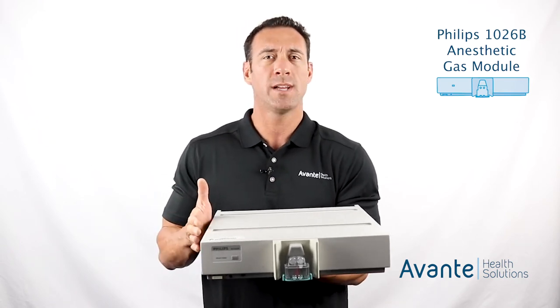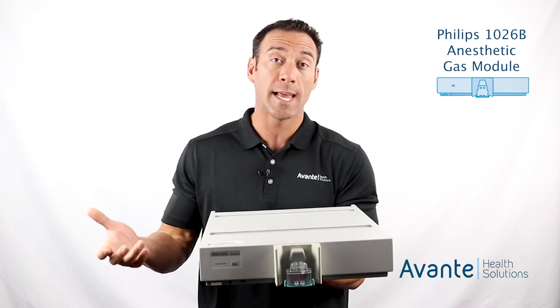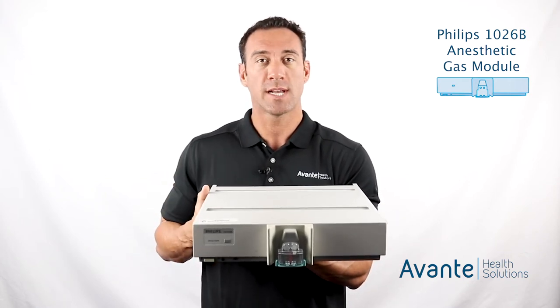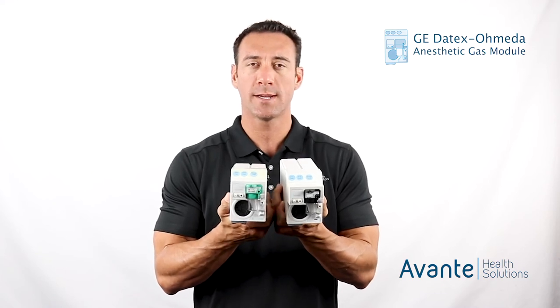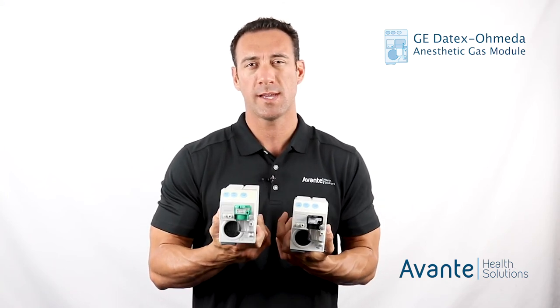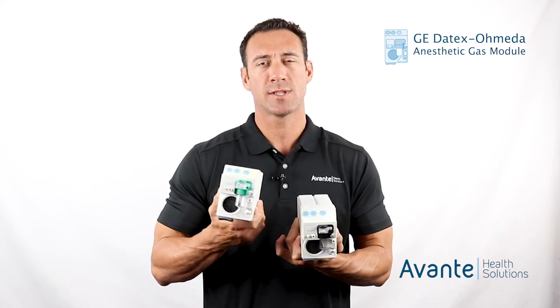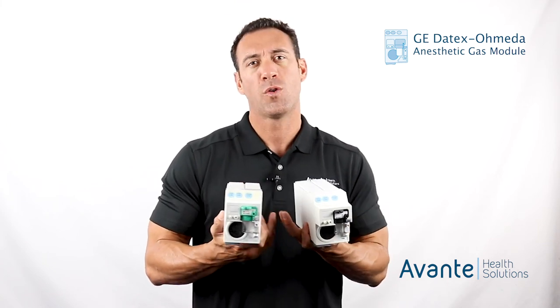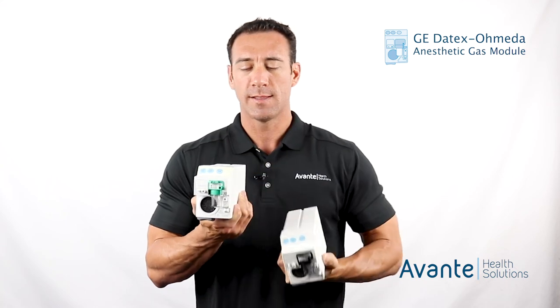These M1026B units are getting older and you don't see them as much, but they are still out there. There's also a version before this called the M1026A — this is just a slight update to that one, but both are very similar in style. Here we're looking at two GE Datex Ohmeda AGMs: the ECOVX and the ECAIO or CAIOV. Interchanging those letters indicates differences between the gases they measure, whether they have spirometry, or whether they can measure oxygen. The one in my left hand is the spirometry unit and the other is the ECOVX.